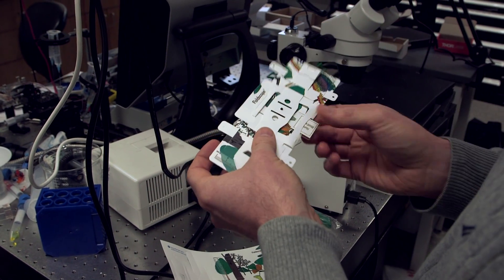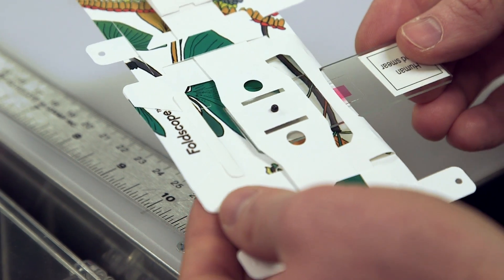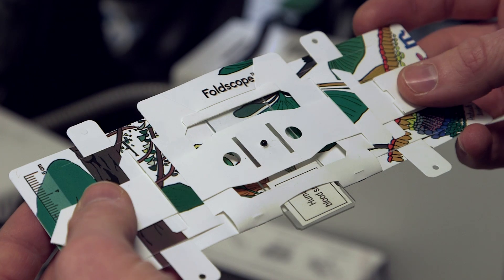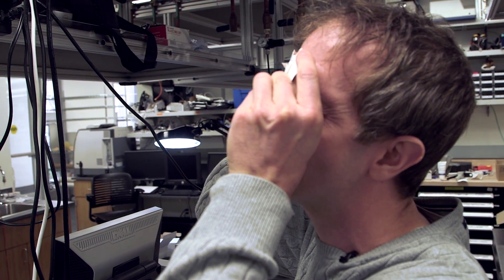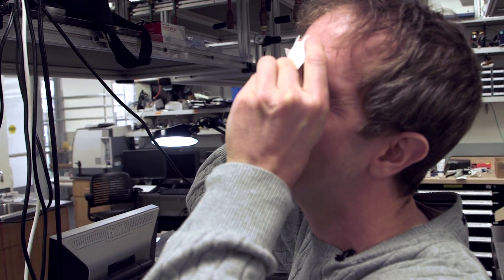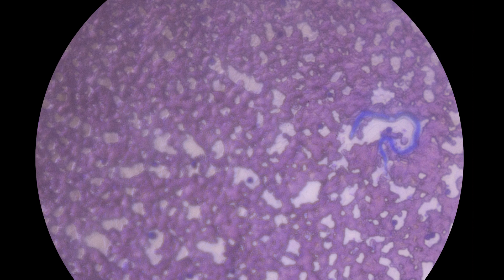When you assemble the Foldscope together you end up with something that looks like this. It accommodates a standard size slide, which is inserted from the bottom like this. In order to use the Foldscope, you can pan the lens relative to the sample. To view the sample, you want to hold it up towards a light source, unless you have a light source on the back, and just look through the lens with your eye. This is a human blood smear that I'm looking at now.